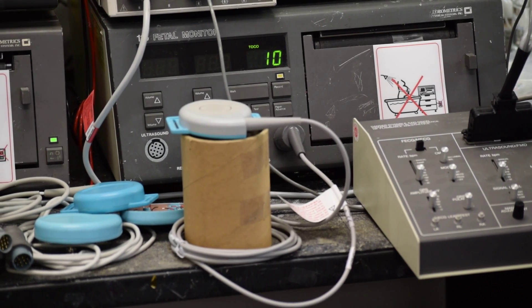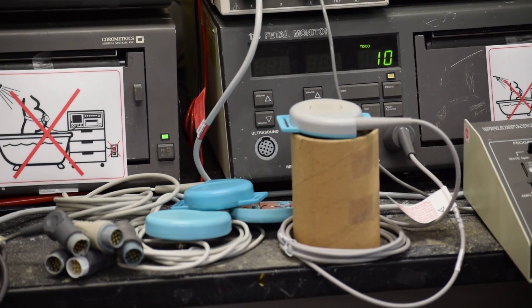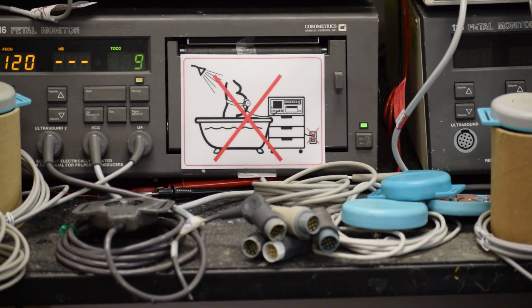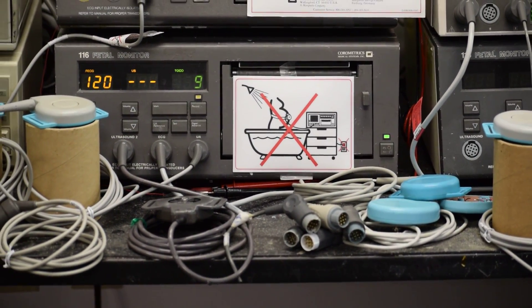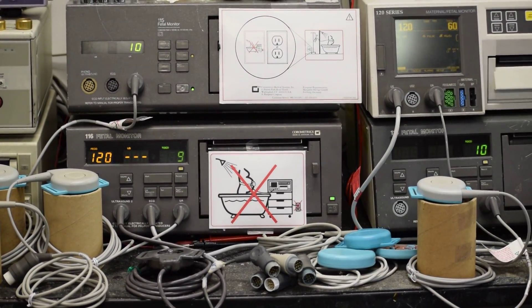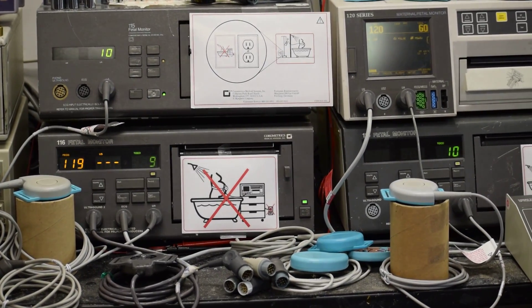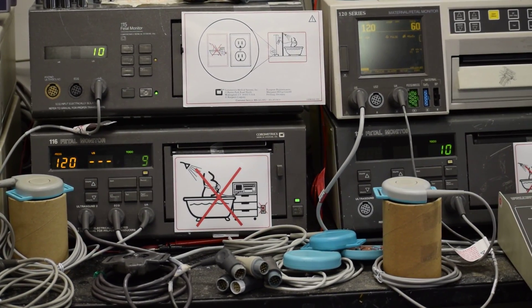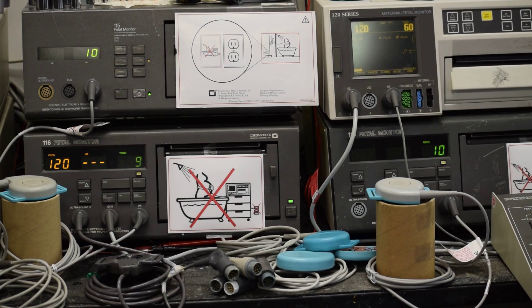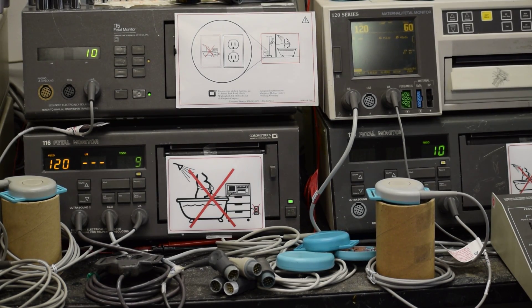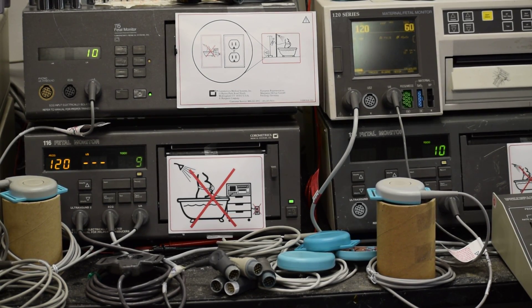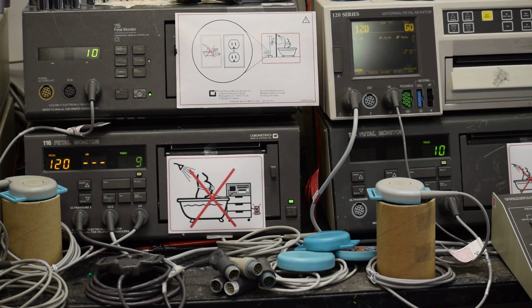No matter which transducer it is - ultrasound, TOCO, ECG, or cables - they have to function to exact OEM specification consistently for a period of time. That is guaranteed for that device after repair. We offer overall two-year warranty. We have developed innovative technology for bonding crystals so that you get a lifetime warranty without any additional cost on OEM transducers.